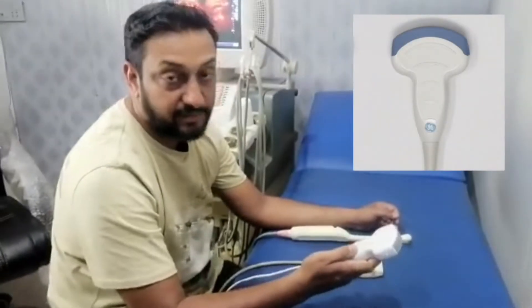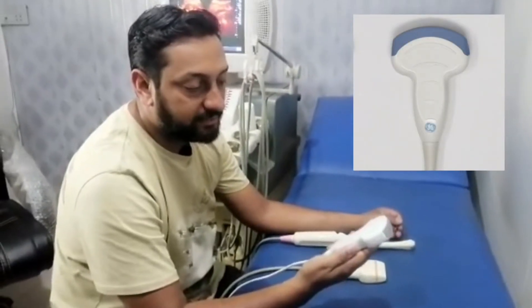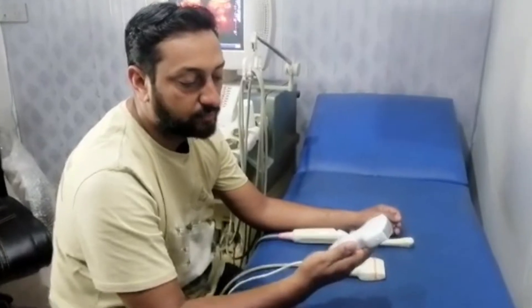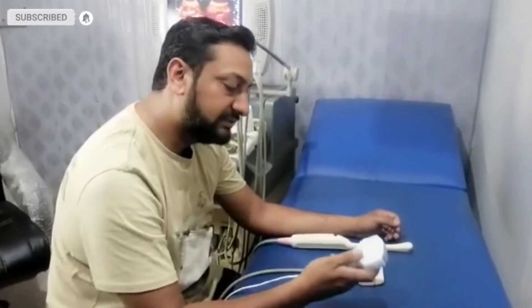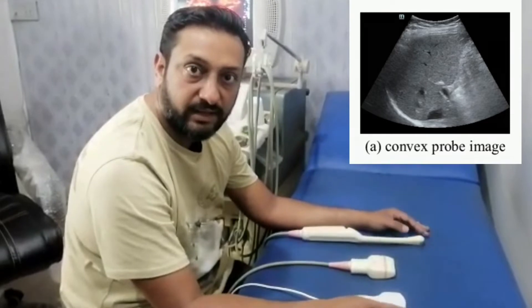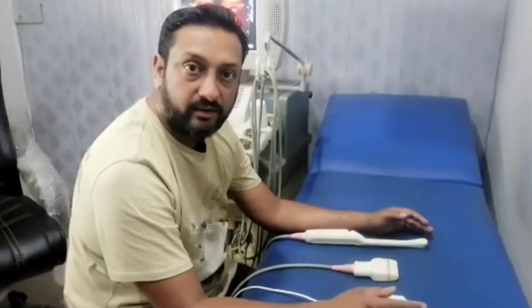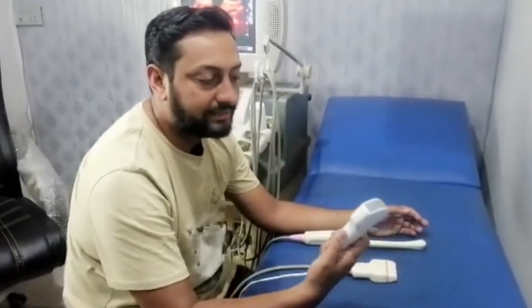This is called a convex array probe. This probe is a variable frequency probe and its range is from 3.5 MHz to 5 MHz. This probe is used for examining the abdominal structures like liver, pancreas, kidney, and all the obstetrical ultrasound as well as pelvic ultrasound. So for any routine ultrasound we will need this probe, which is the convex array probe.